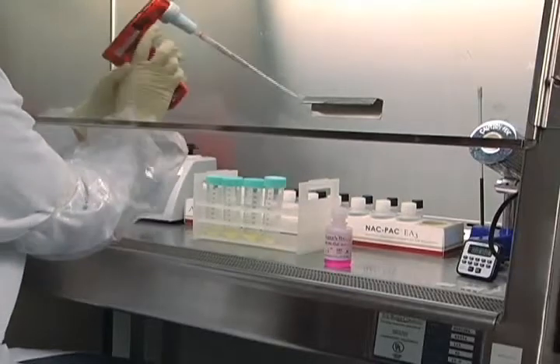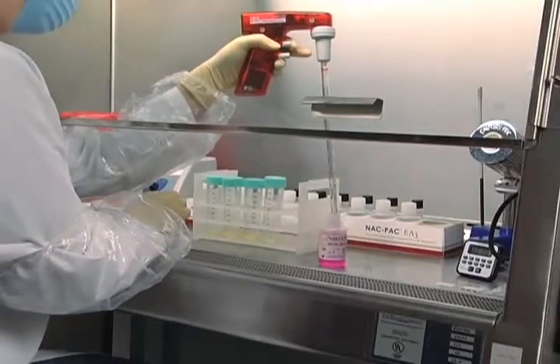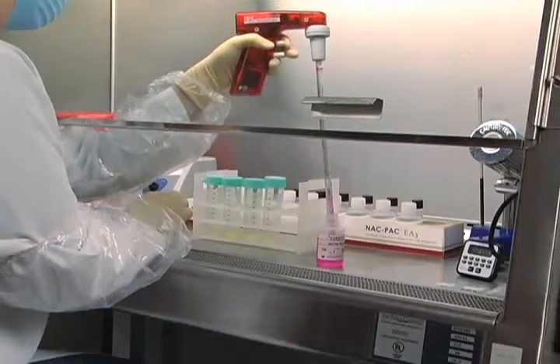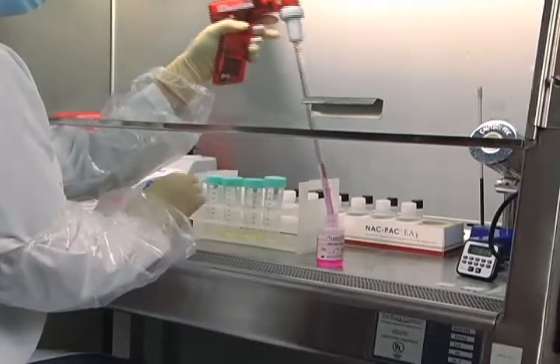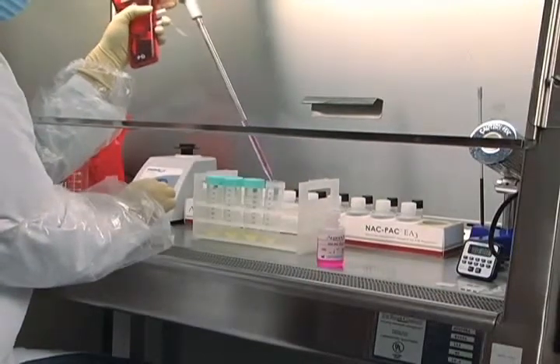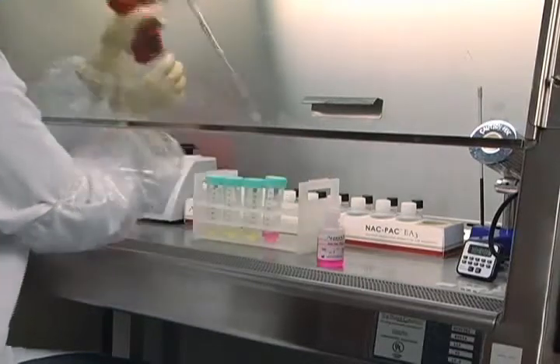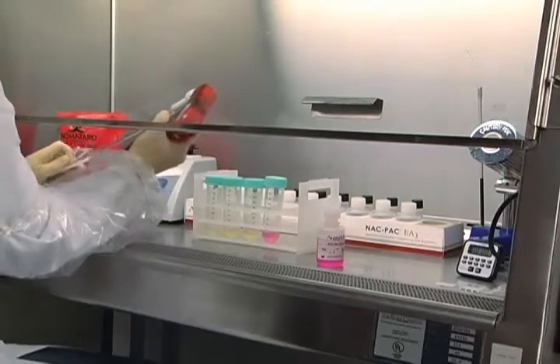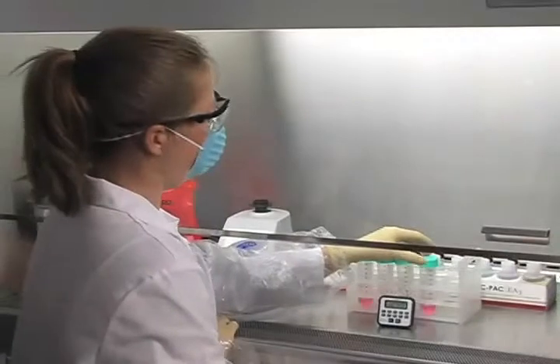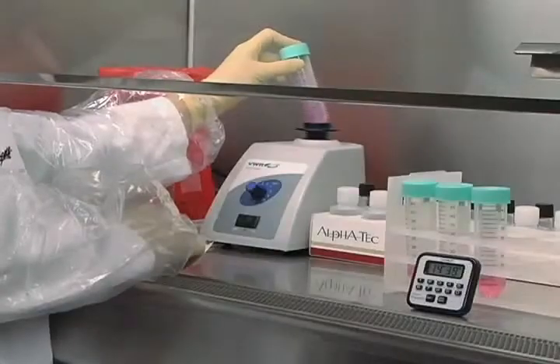For specimens that are 1 to 5 milliliters in size, add a volume equal to that of the specimen volume. For specimens that are 6 to 7 milliliters, add only 5 milliliters. If you receive a large specimen between 8 to 10 milliliters in volume, add an equal volume of NACPAC Red and split the sample evenly into two 50 milliliter centrifuge tubes after the decontamination period. The volume of sample and digestant must be measured precisely to ensure proper neutralization.